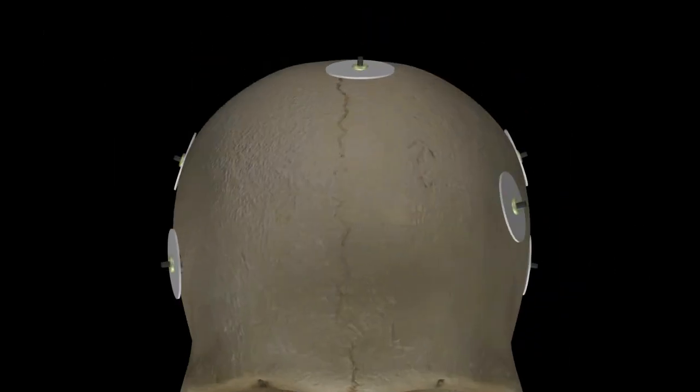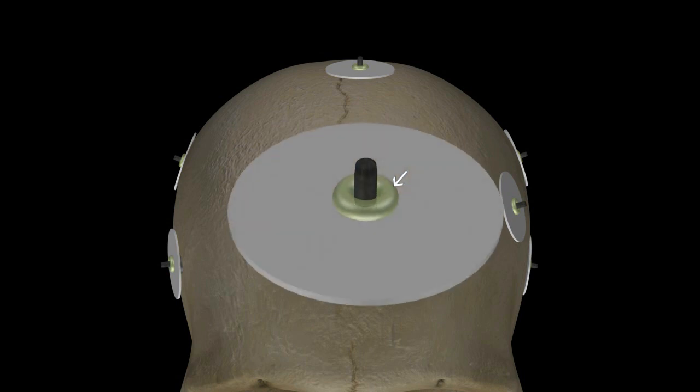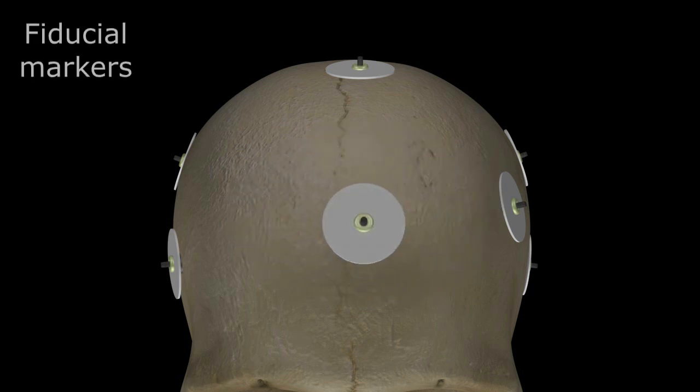Taking advantage of the high intrinsic spatial and contrast resolution of standard MRI, multiple EEG pads could be placed on the scalp prior to MR imaging. These special pads would contain a small oil-filled capsule in the region of the contact that would be detected with a standard T1 spin echo sequence and thus serve as multiple fiducial markers.